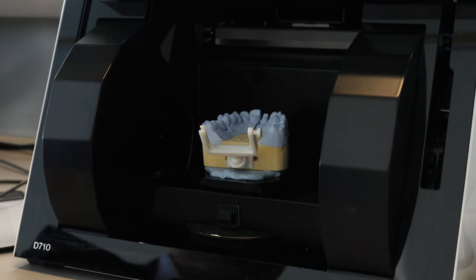Our 3D scanner and 3D printer are the new digitalization of dental technology. What it is is basically computer-aided design and computer-aided milling.